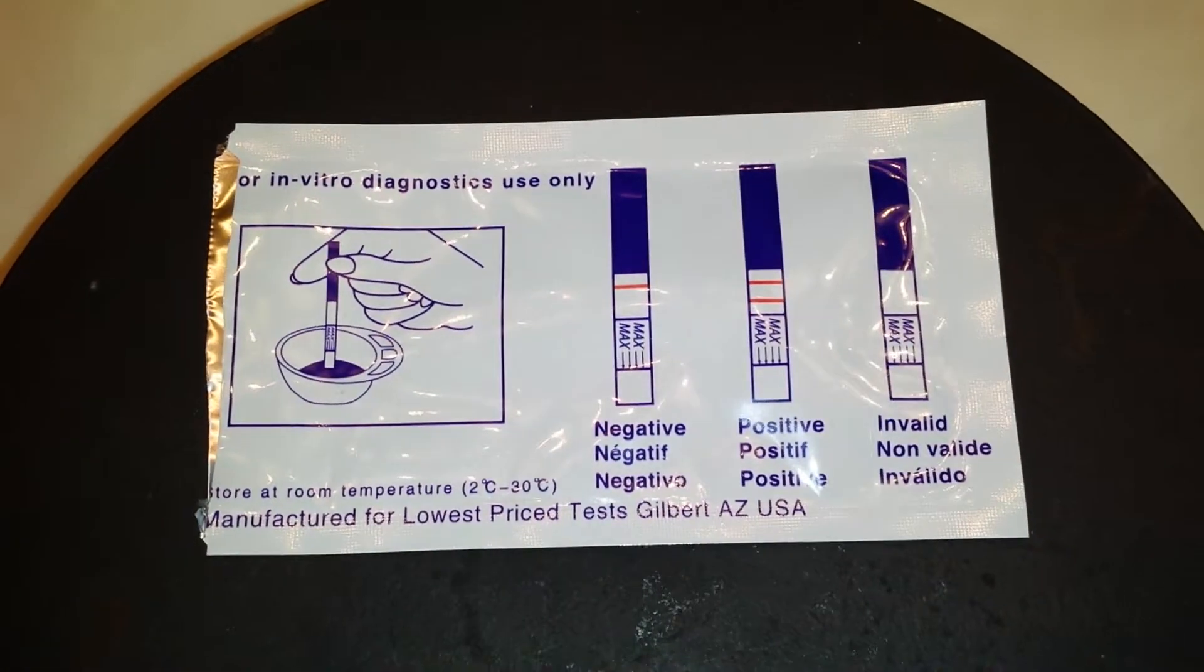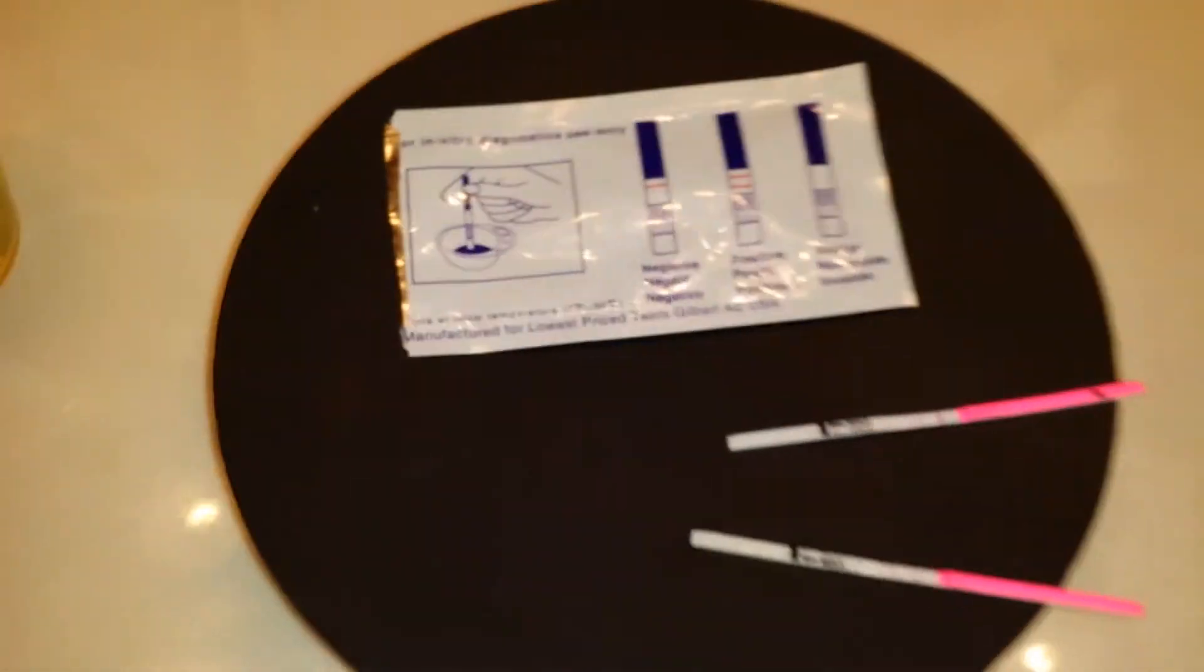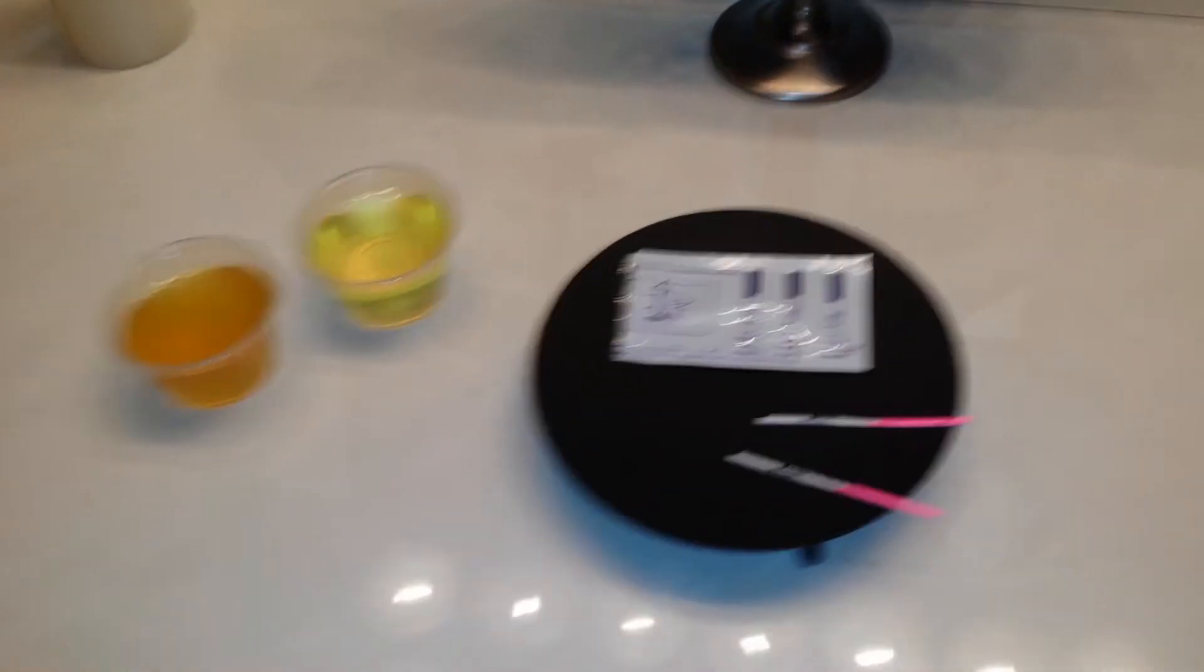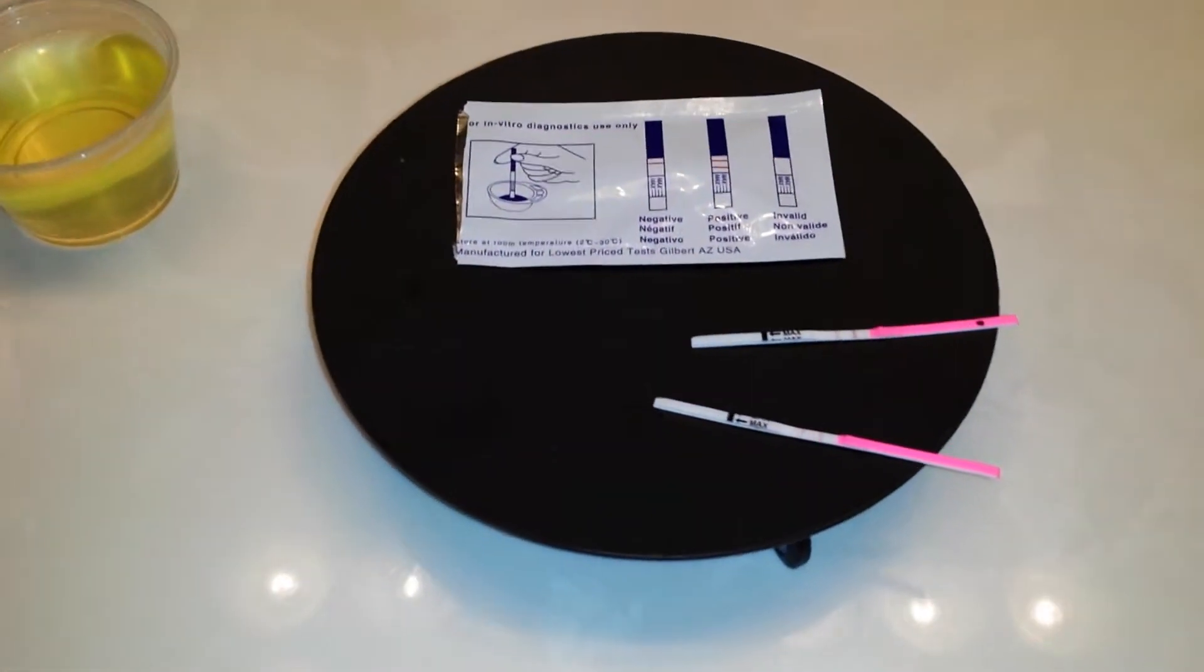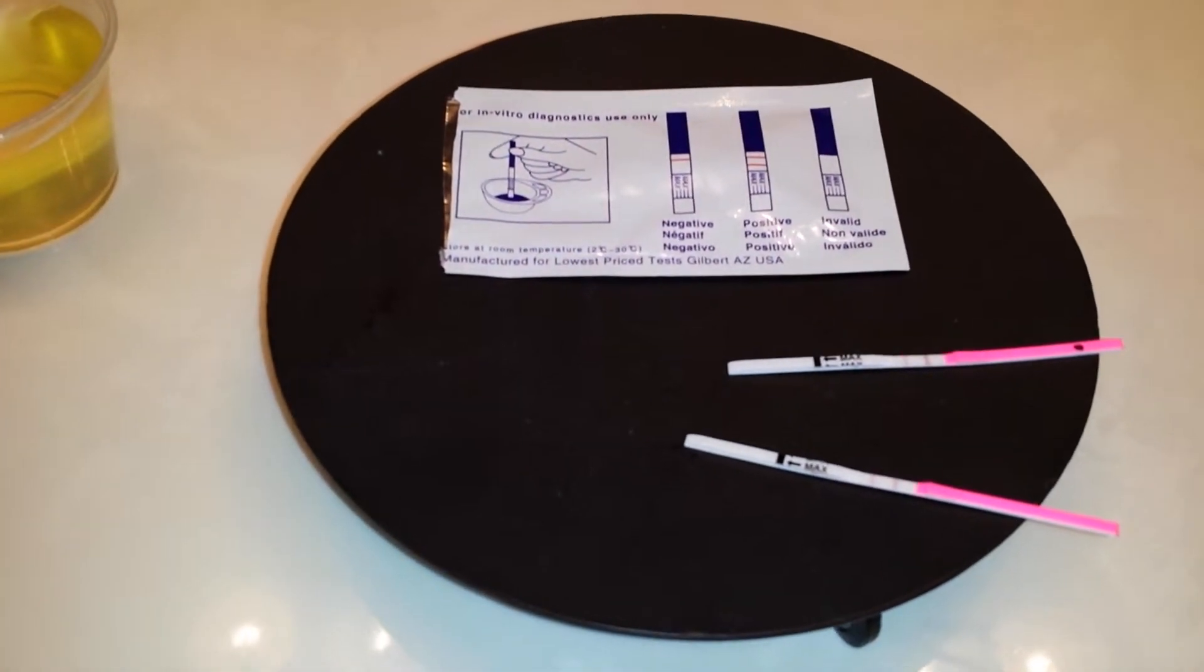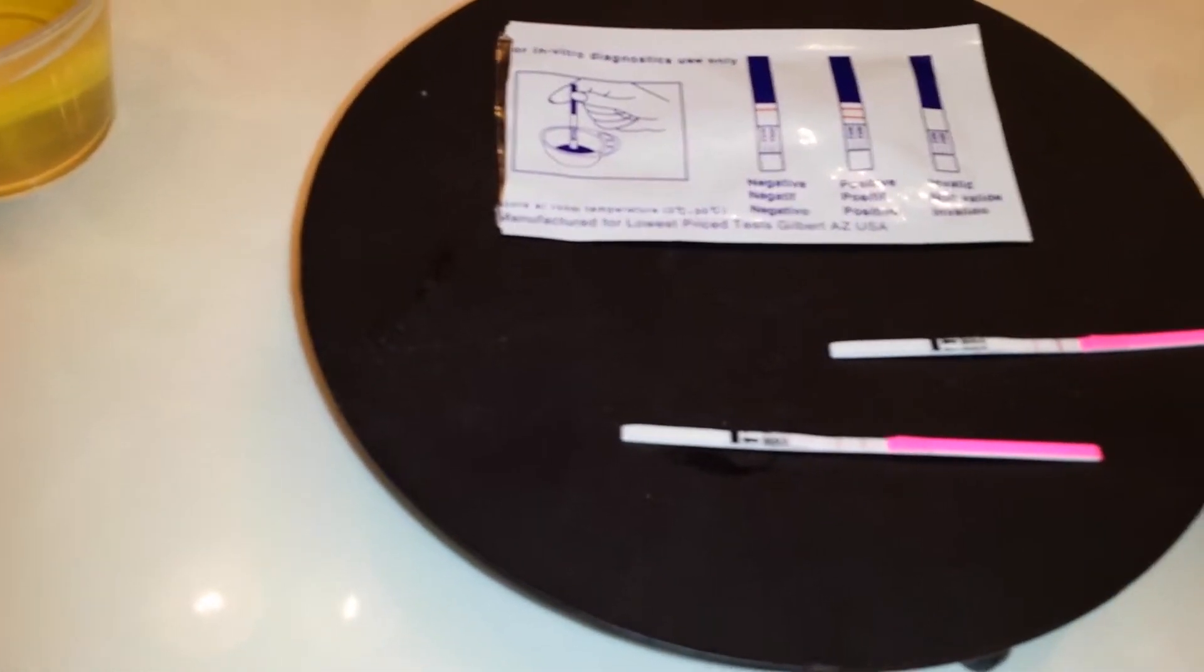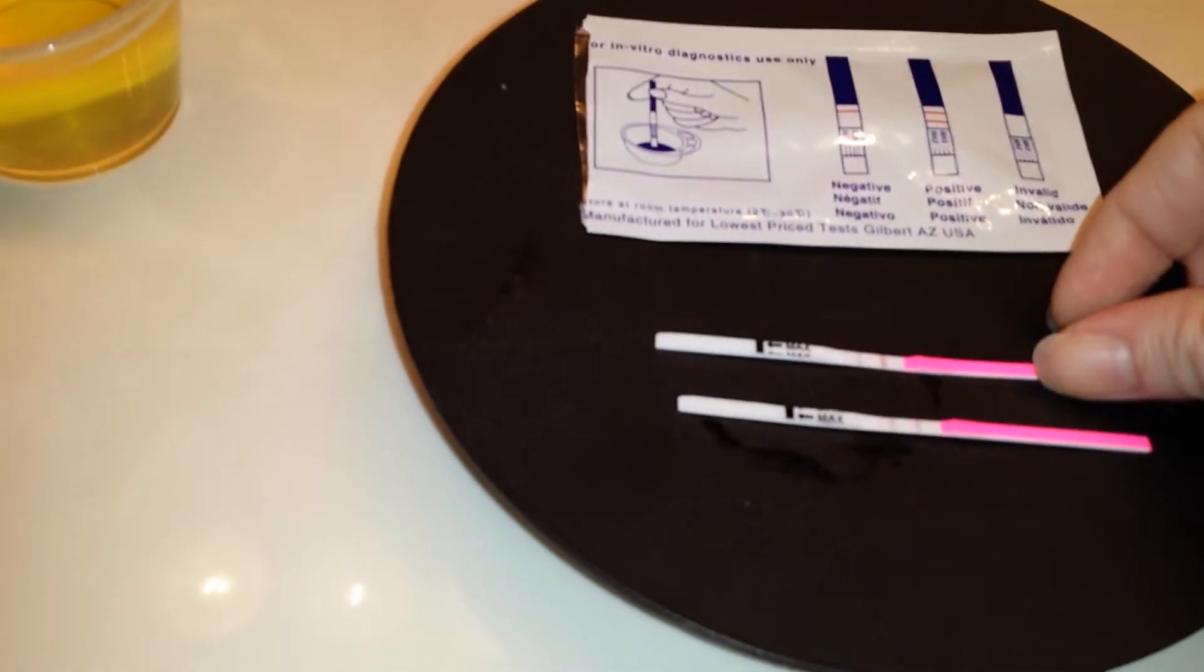So even though right here, it's essentially seeing a line as a line, that's not true. I definitely want to wait, go ahead and wait the full five minutes, five to 10 minutes.